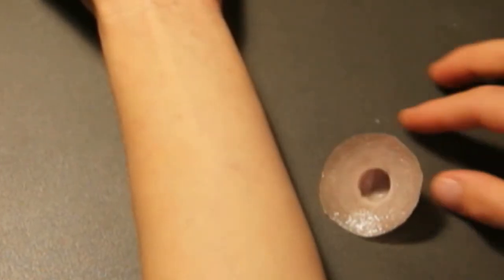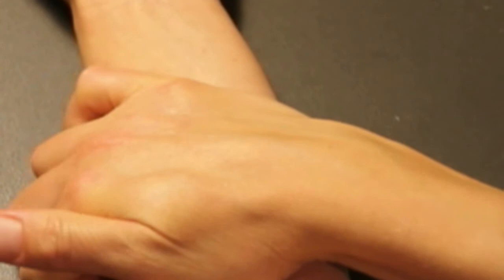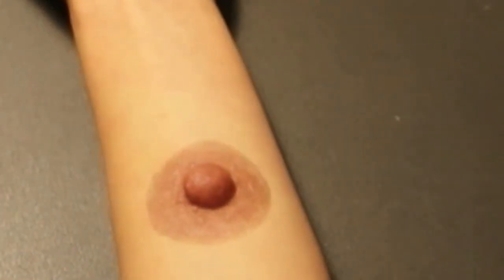Apply the prosthesis to your skin and press firmly. Following these instructions, a prosthesis could remain adhered to your skin approximately two weeks. However, the length of wear is to your discretion.